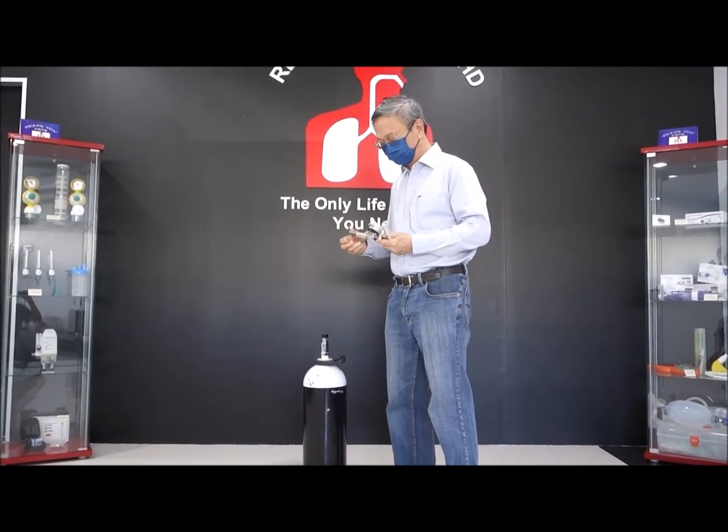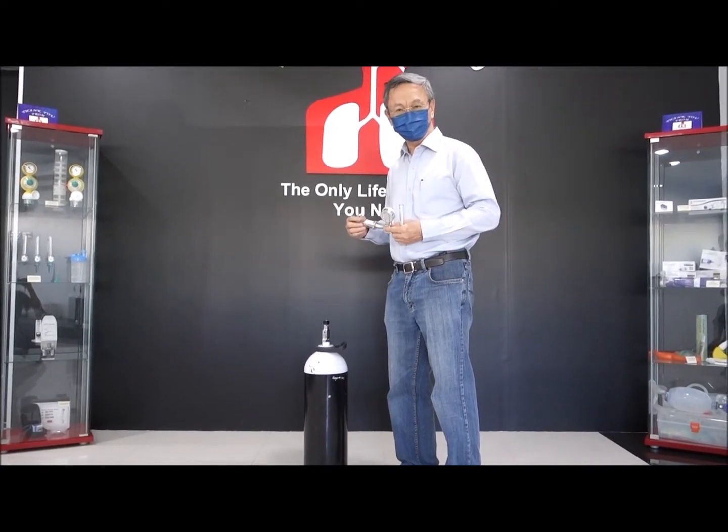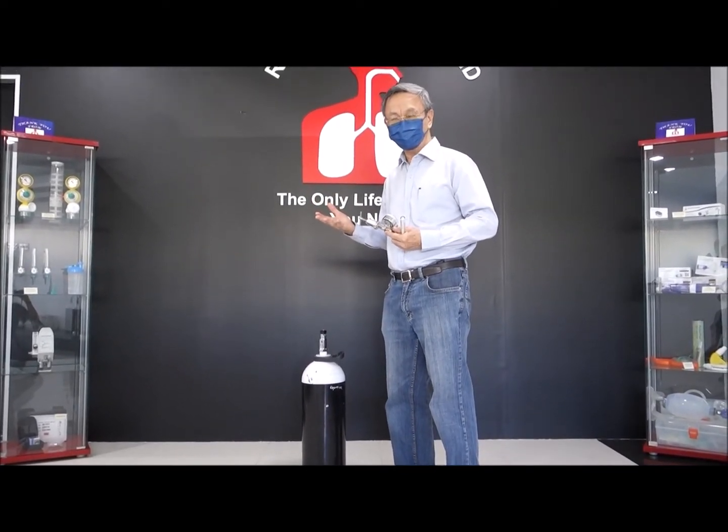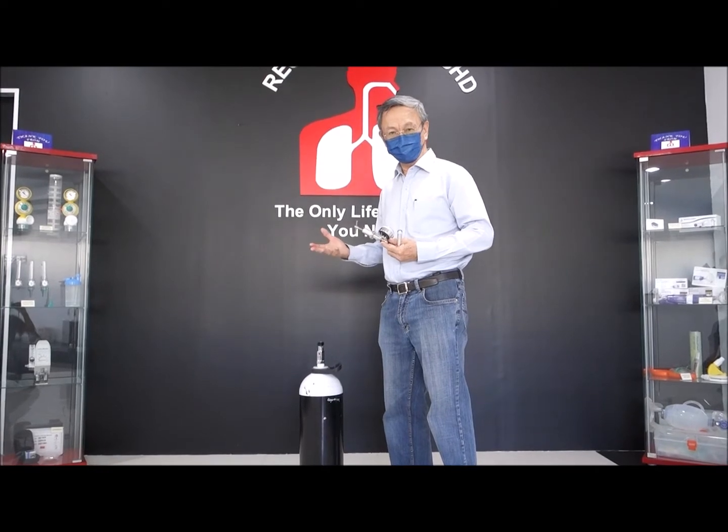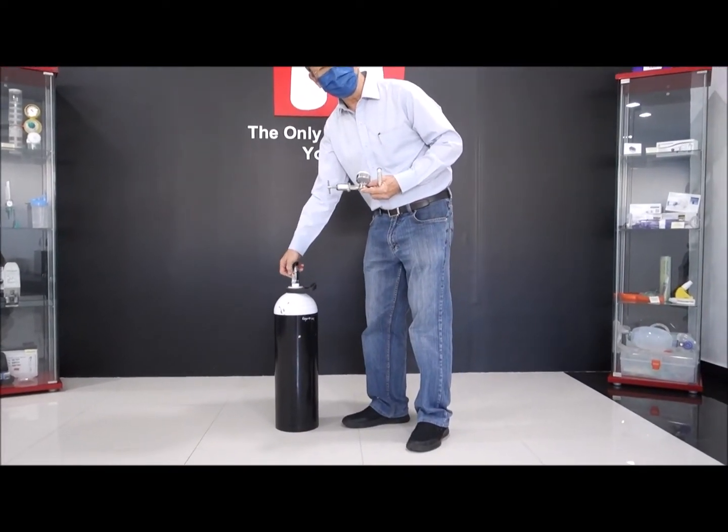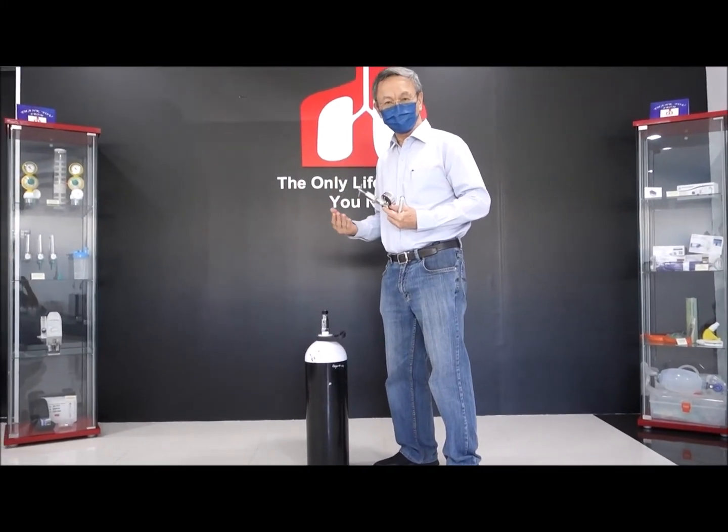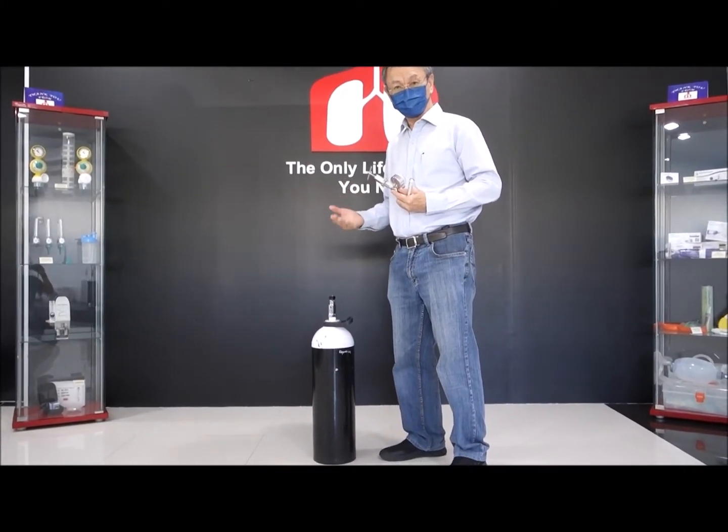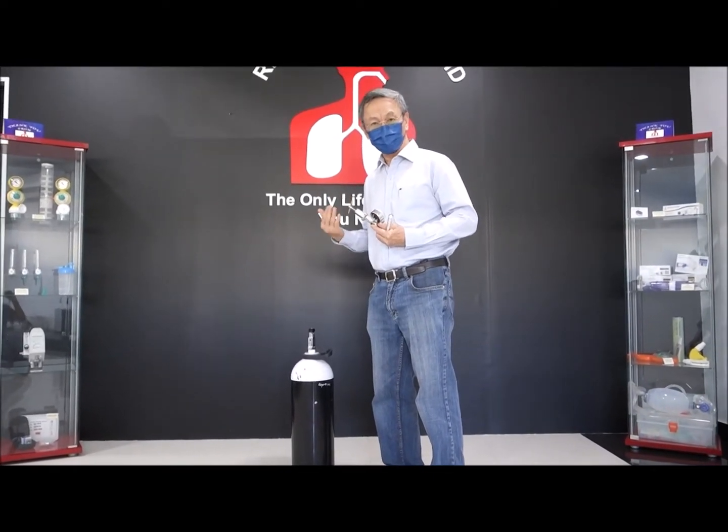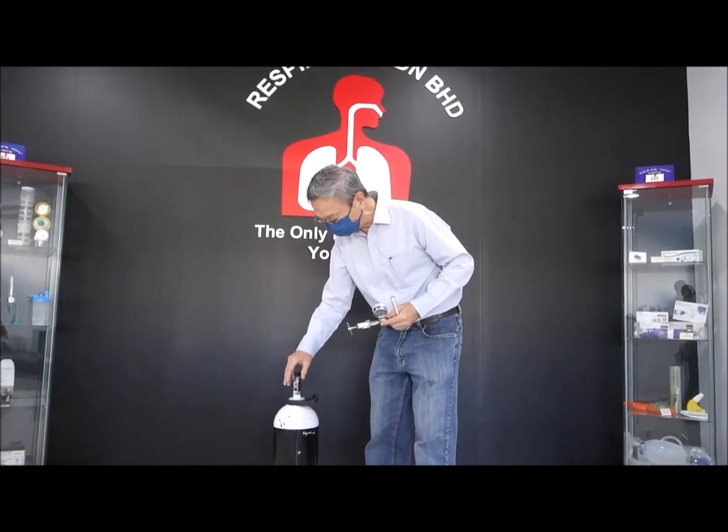So if you see the cylinder valve and there's grease here and there, don't use any oil. Your hand also, be very careful that it is oil free. Because if you get some oil and some stain on here, then you can result in an explosion due to oxygen support combustion. Due to oxidation, it can actually auto-combust and cause an explosion. So be very careful.